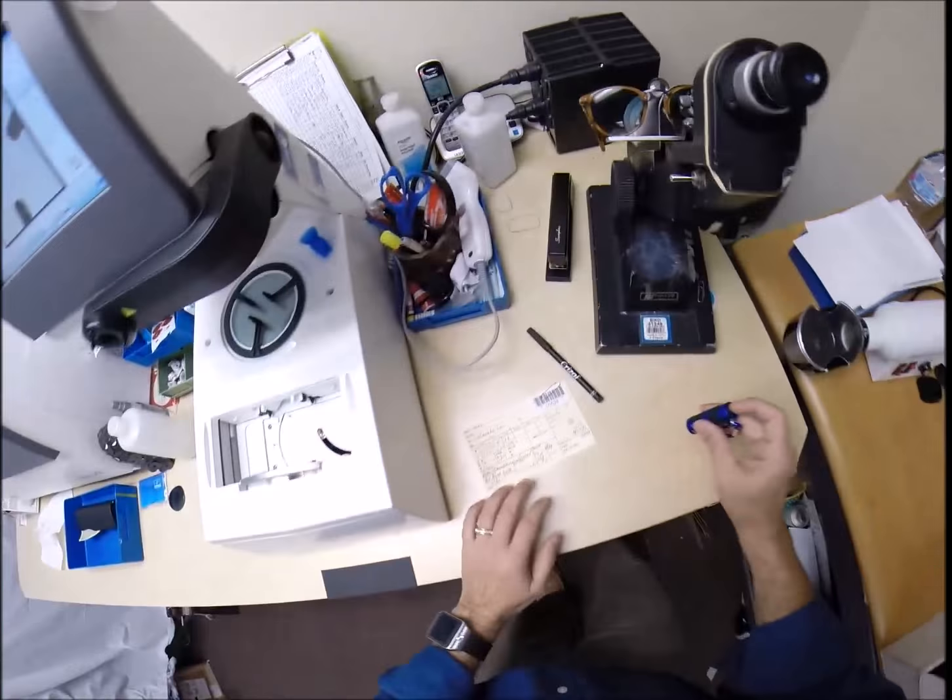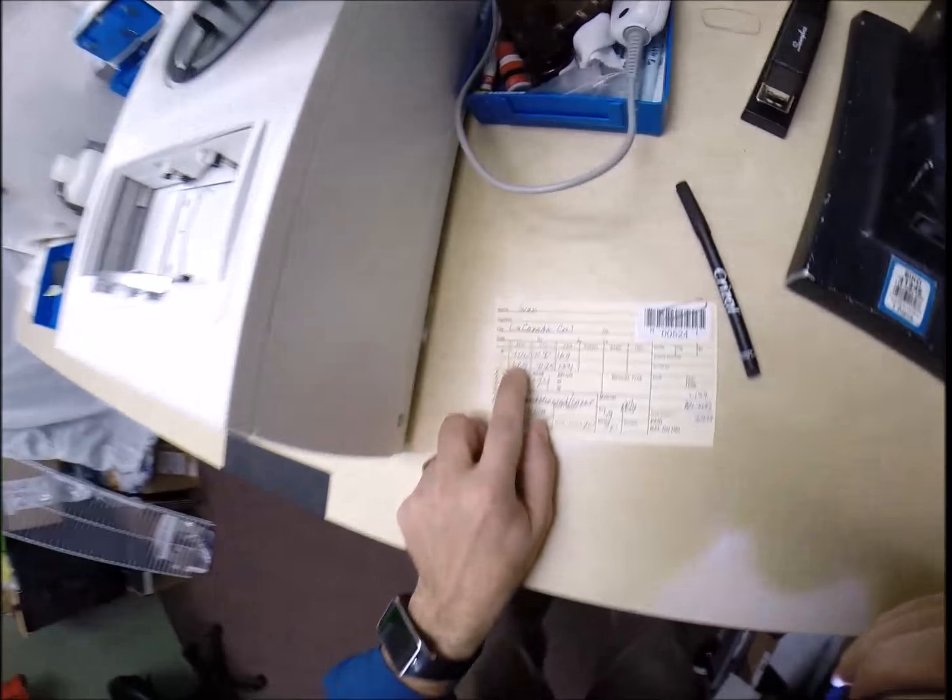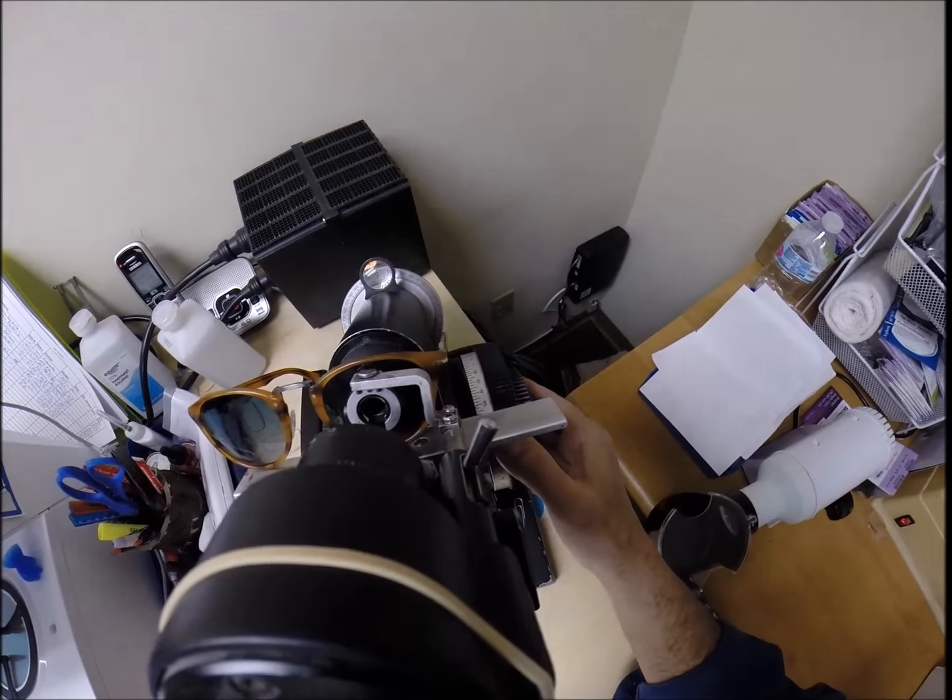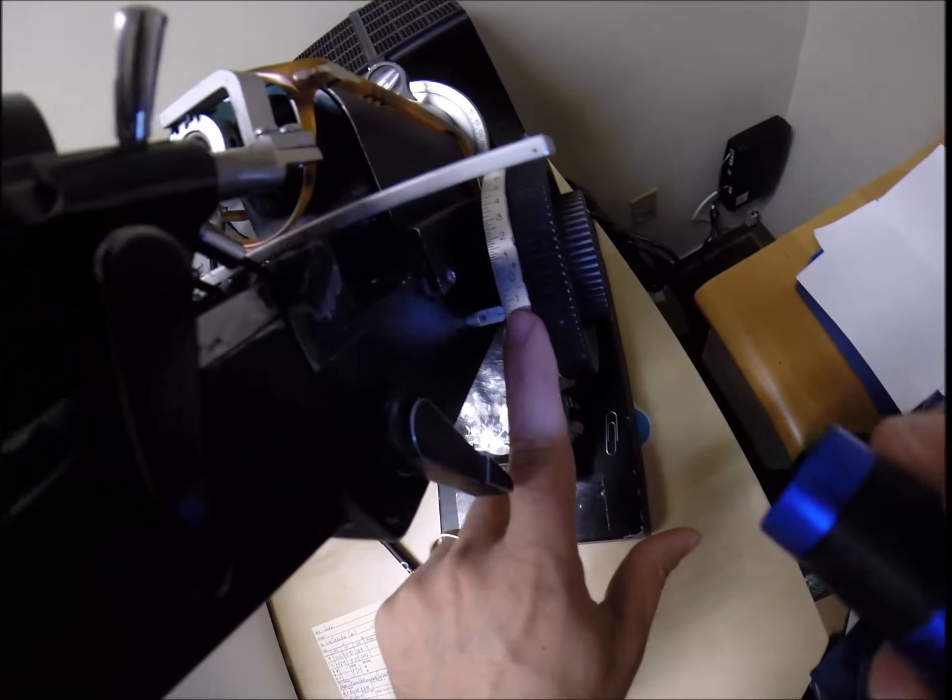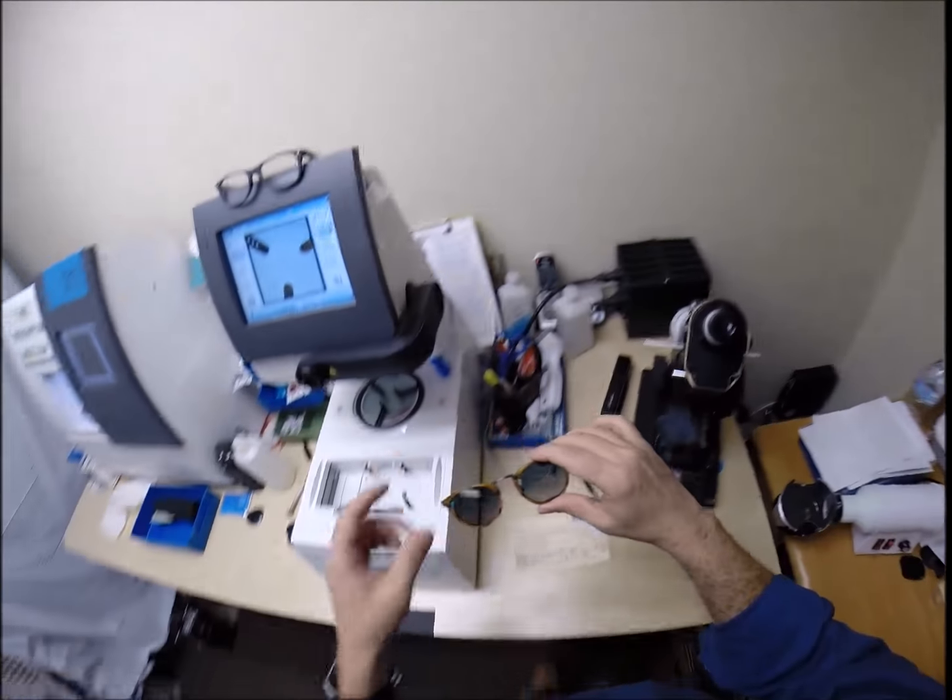Read the power. And I am getting minus 1 and a quarter. So, that's the fifth step. 1 and a quarter. You have one step of astigmatism correction. The smallest amount you can possibly have. And, again, we end up at 150. So, that is cut perfectly. I couldn't do a better job if I had done it myself.